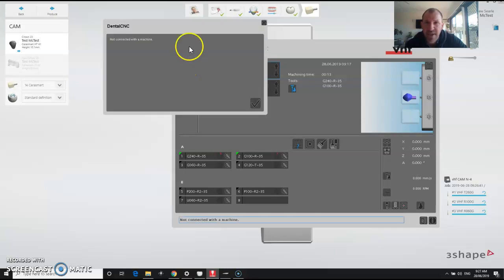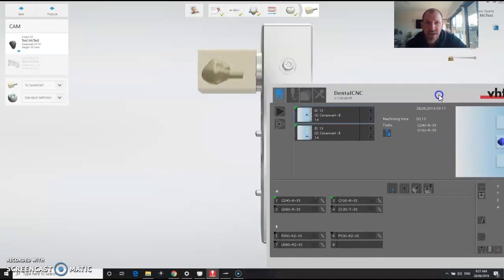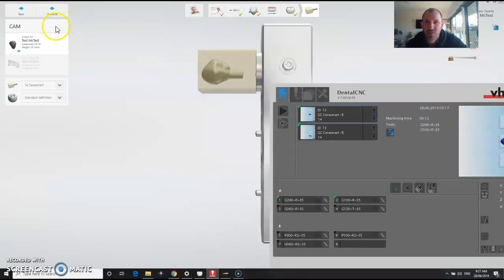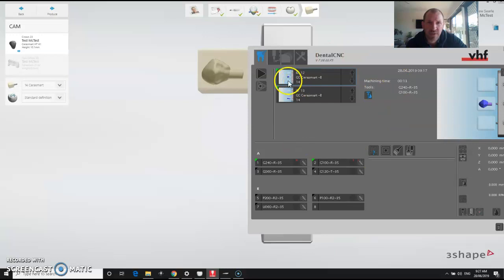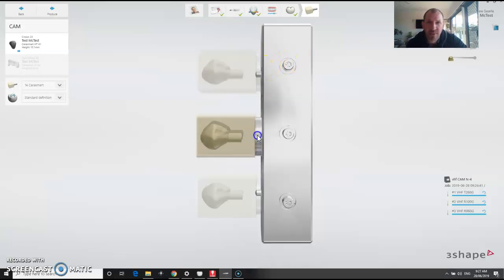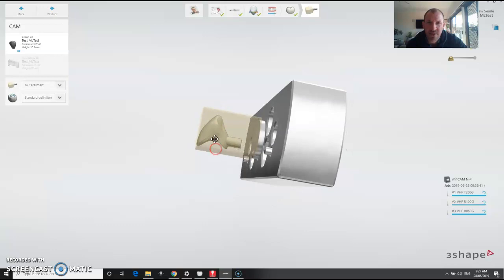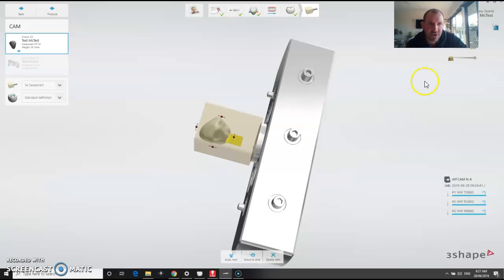If you highlight one and hit play — not connected with the machine, that's no surprise — you hit play and it starts milling. When you do your design in here it automatically goes into the VHF mill software and you just hit play. By moving things around and adjusting the tooth in here, it's putting it straight into the machine.